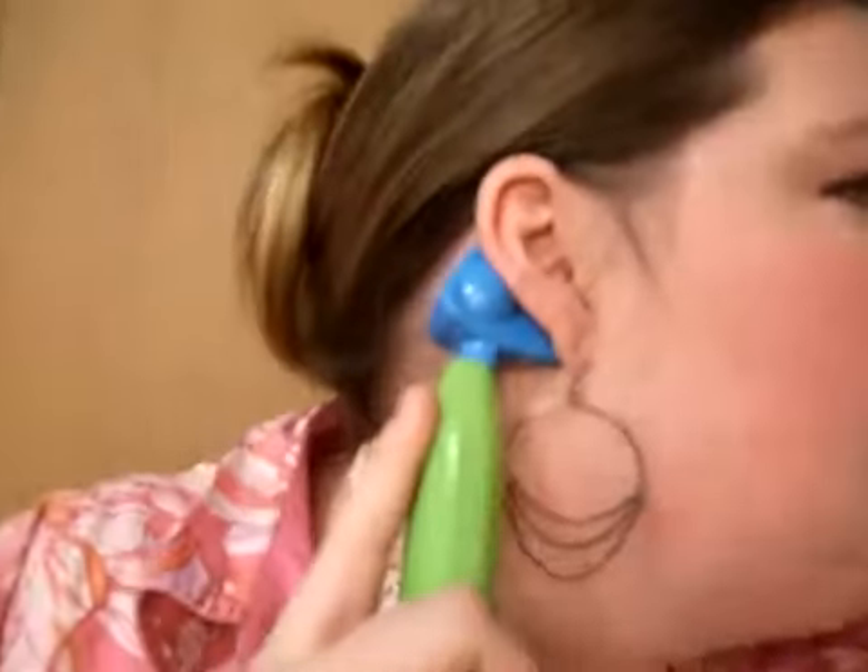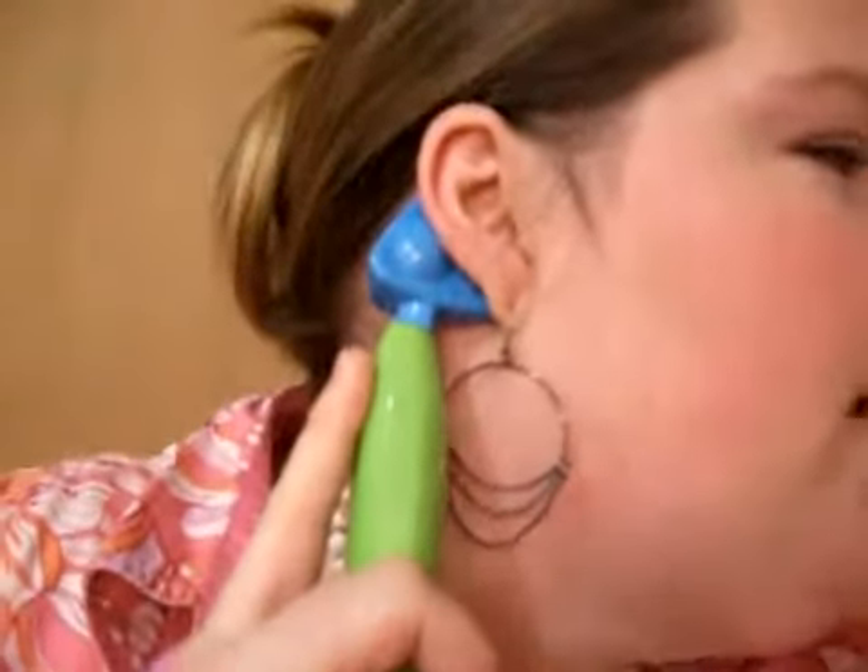You can adjust the speed — the farther up you go the faster the vibration. Simply place the Ear Dock behind your ear and hold it there for a couple of minutes and voila, ear pressure disappears.